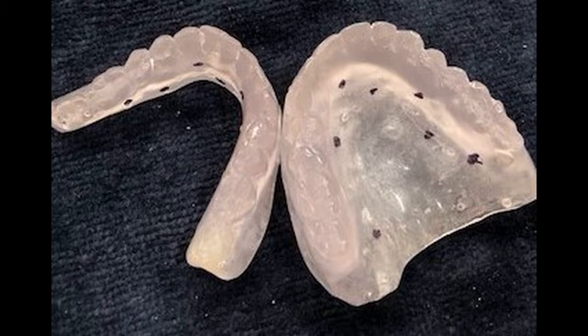In most cases, the new dentures that are fabricated can be used as a scan appliance by either putting radiographic markers on the surface in six different locations, labial and tongue side, or they can be duplicated into a scan appliance as imaged here. Please allow the laboratory to duplicate the new dentures to make scan appliances. Once the scan appliances or the dentures are confirmed to fit 100% and the doctor is happy with the tooth position, then a dual scan technique is performed, following the traditional Nobel dual scan protocol.